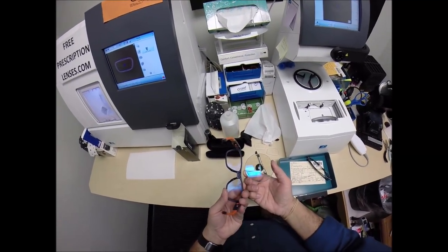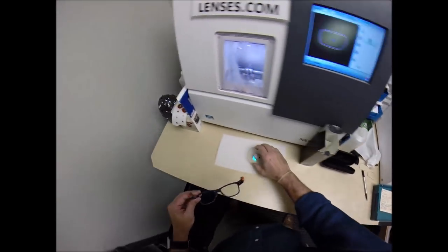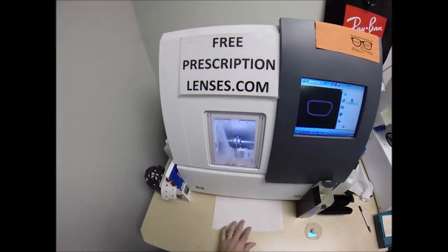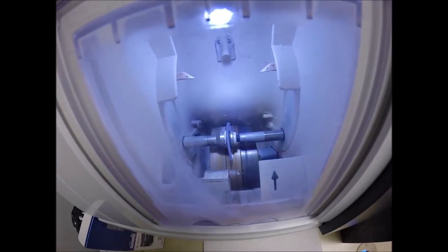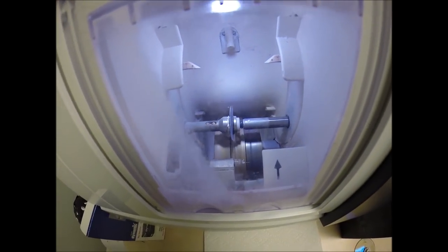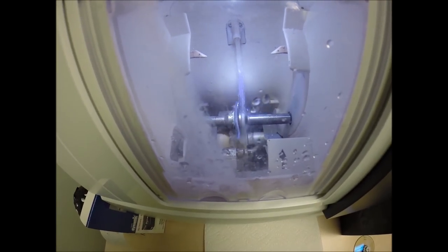Now you actually do have an anti-glare coating on the back surface. Now here's a good test, or I'll do that later with mine. But right now you can get any of the six mirror coatings of silver, gold, green, blue, red, or pink. So the water has begun spraying, which tells me it's in the last 20 seconds.